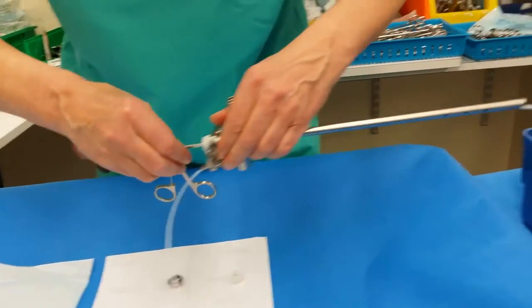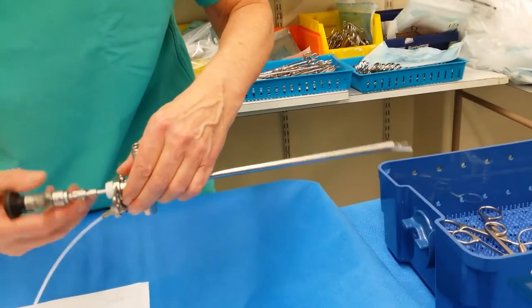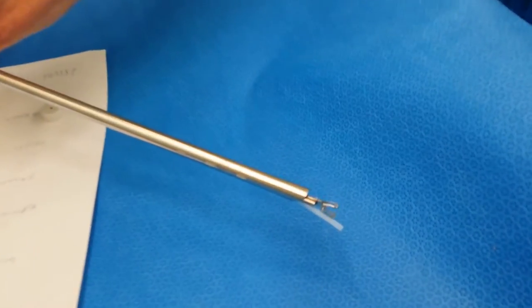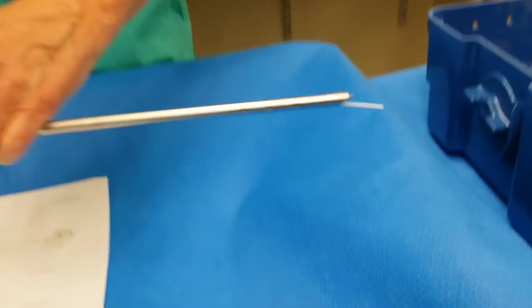You can then work down at the end if you're trying to catch a foreign body in the child's bronchus.